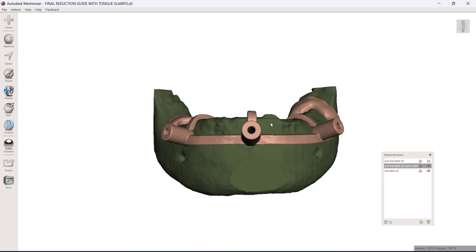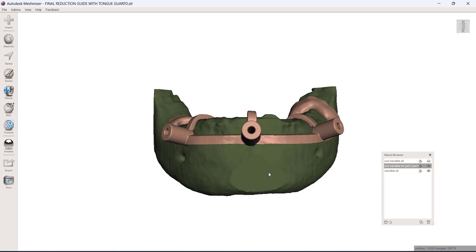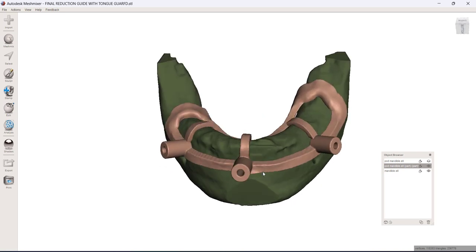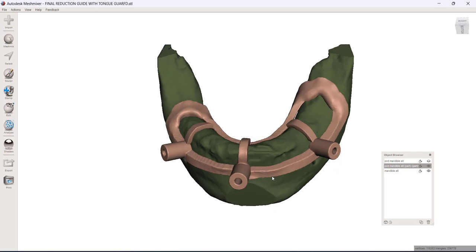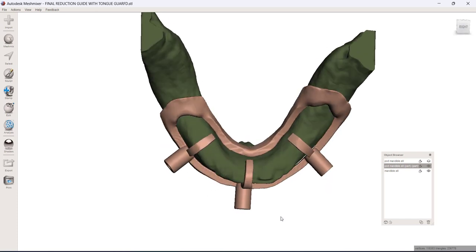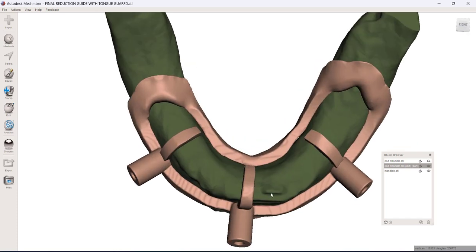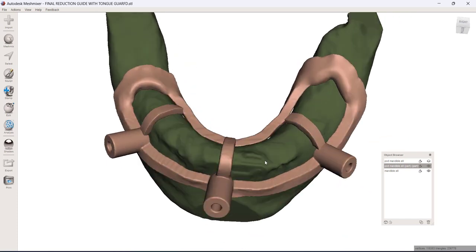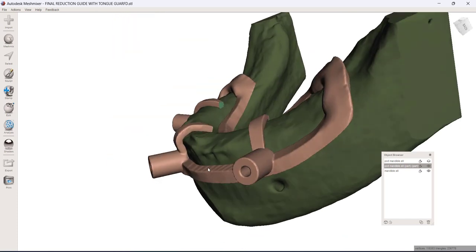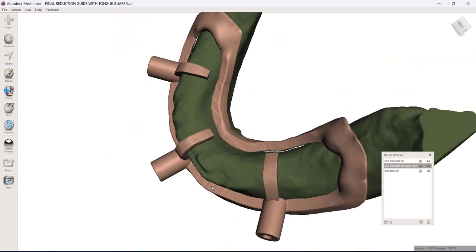And since that was a good 7-8 millimeters of bone reduction, to me that indicates a bone reduction guide. And so that's what you're looking at right here is the bone reduction guide.